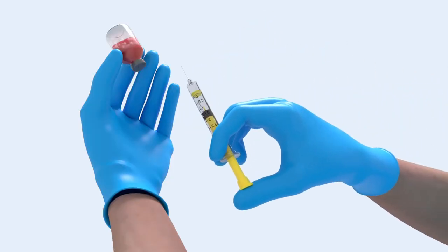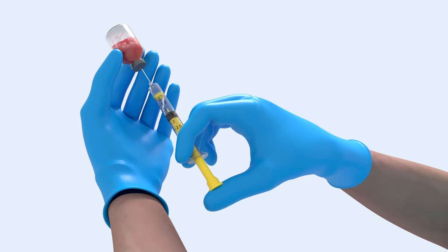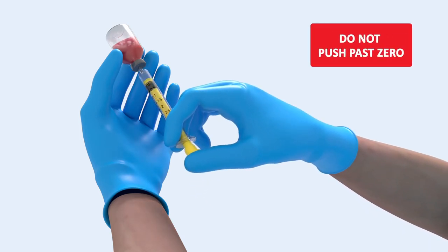If infusing air into a multi-dose vial, draw back the plunger to equal the amount of medication required. Do not push past zero while injecting air into the vial.